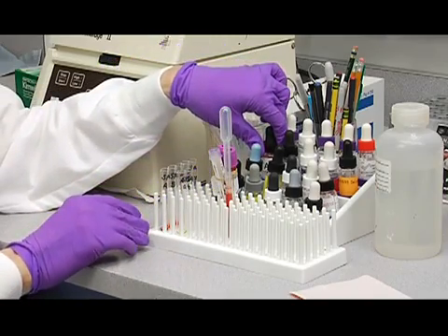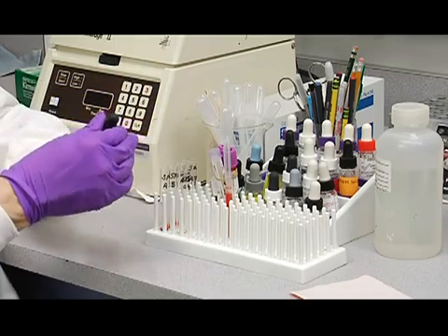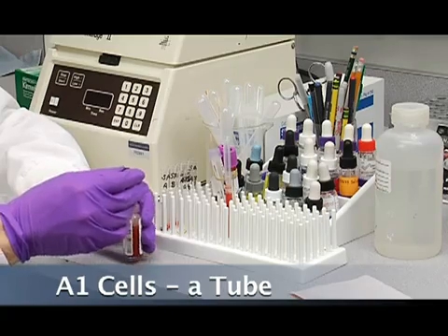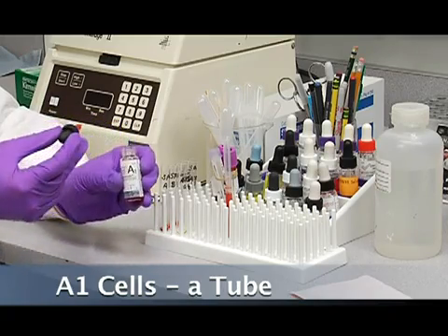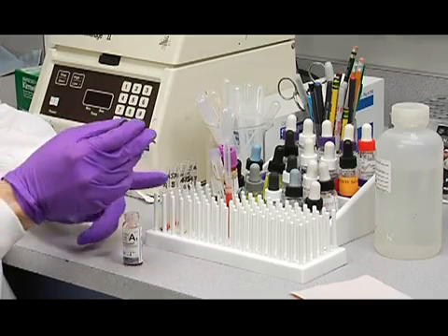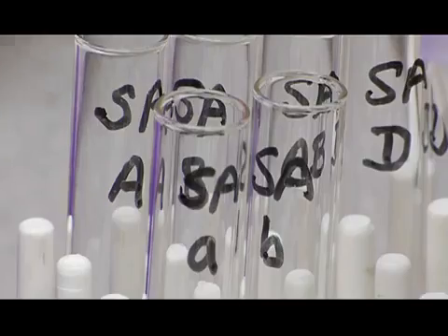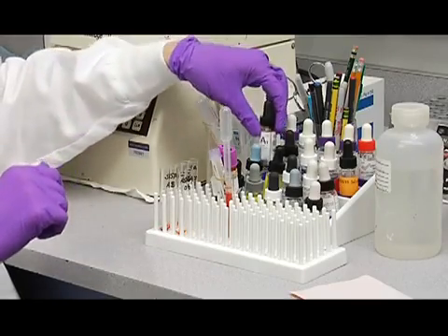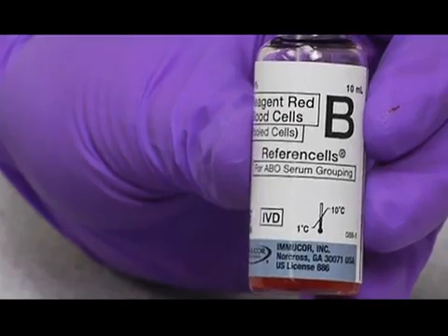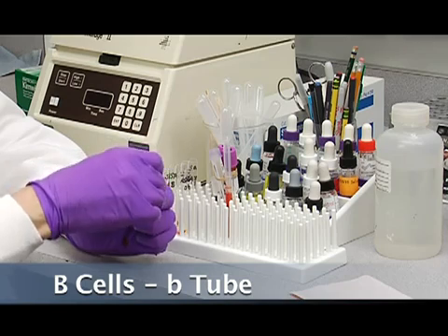Then after adding cells to your forward, we're going to add reagent cells, A and B cells, to the reverse tubes. So we're going to add A1 cells to the A tube. I'm going to add B cells to the reverse B tube.